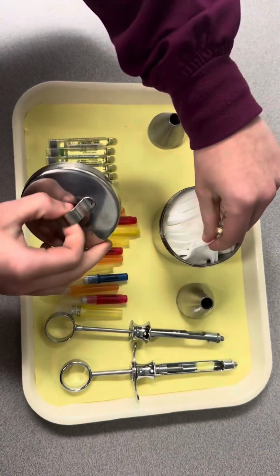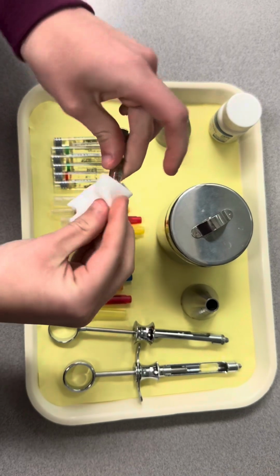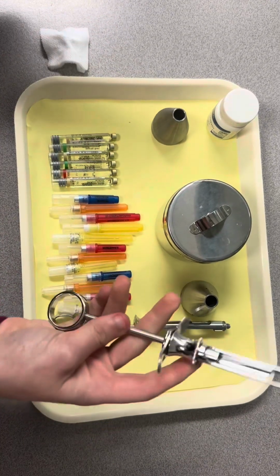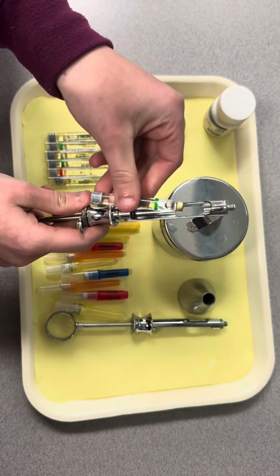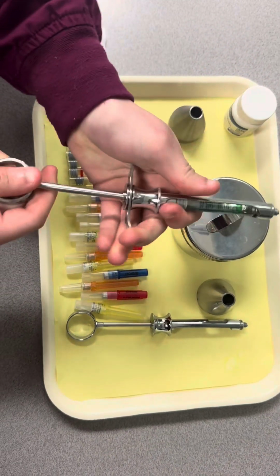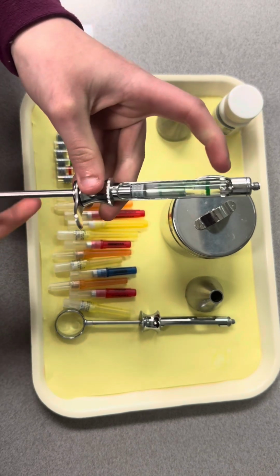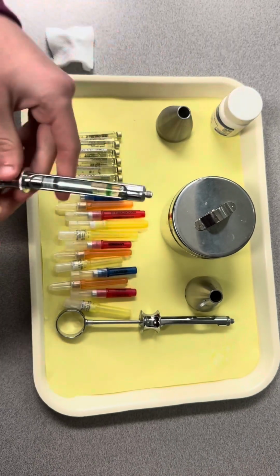So we are gonna grab a cotton pad with some alcohol on it, and we're gonna take this top part and disinfect it pretty good, because that's where the needle's gonna go in. After that, we're going to take our syringe. You're gonna wanna make sure that the cap that you just disinfected is at the top of the syringe. You're gonna just slide it in. You're gonna wanna pull back on this so it can drop down in there. And then you're just kinda gonna push it or hit it to make sure that it's all the way in. You wanna turn it, and if the anesthetic turns with it, you know it is in there pretty good.